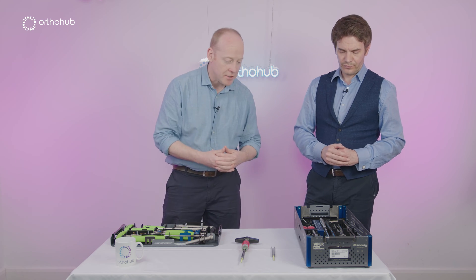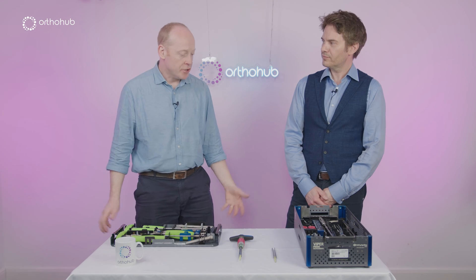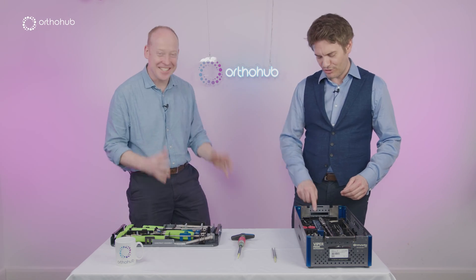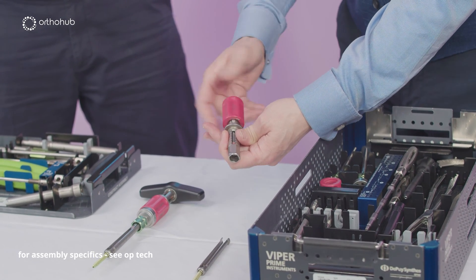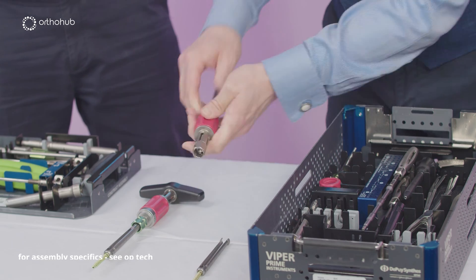Let's start pulling out this system. How do we get from this to a mounted-up pedicle screw? The great thing is there's an assembly instruction in here. We need to create the screwdriver — it's four pieces. This always surprises everyone because this is a reverse screw. And then the final bit just lines up and clicks in there.